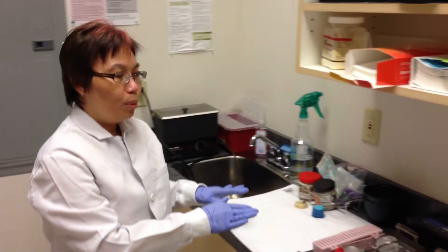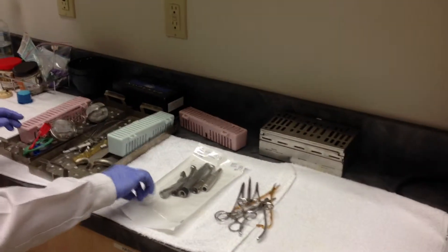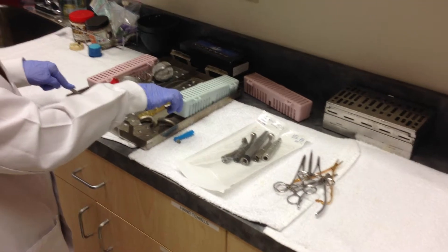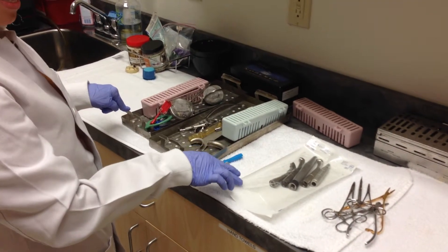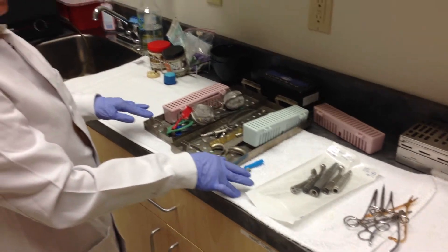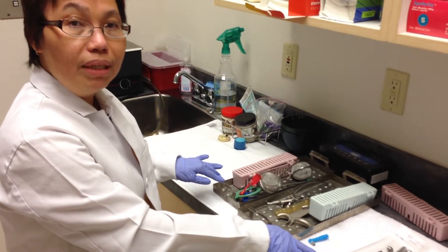all of those instruments are put in this area. They will be either bagged or put in the sterilization cage. These bags have a special indicator that turns color after sterilization so that we know exactly which instrument has been cleaned.